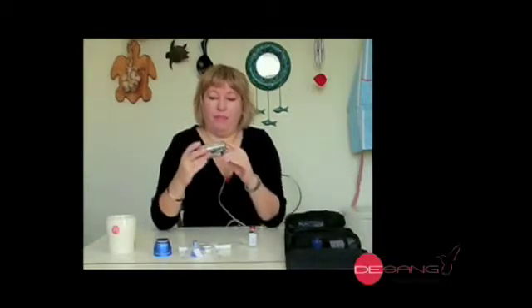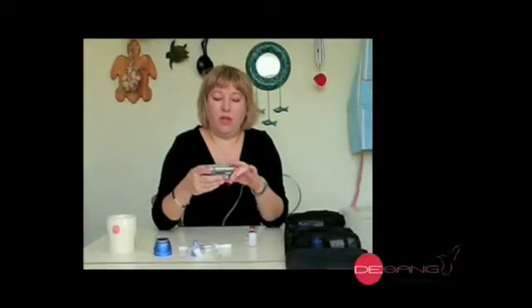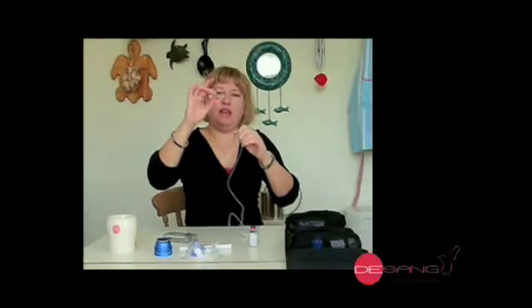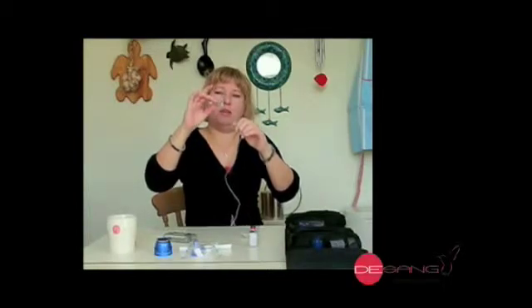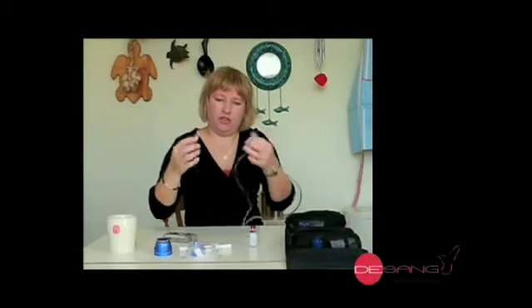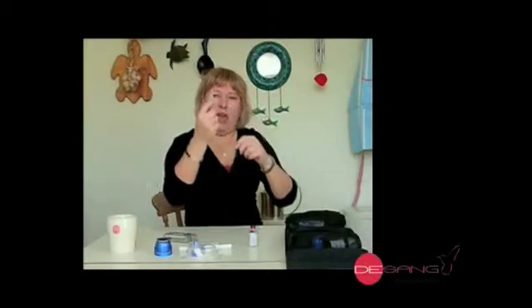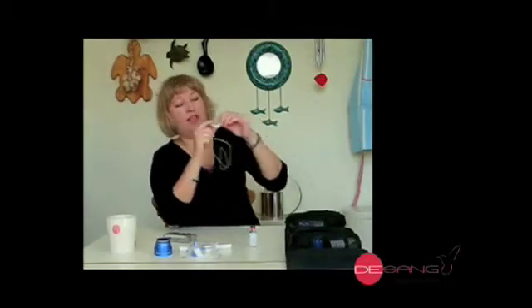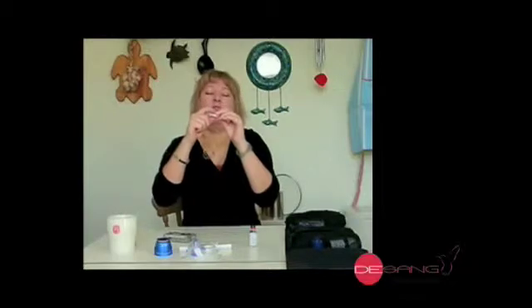This is the pump. I'm not going to go into huge detail as to each step, because if you have a pump you're going to have to do it yourself. I'm just busy rewinding back to the beginning, and this is what's come out. That's got a little tiny bit of insulin left in, but it might last me a couple of days. But as I'm changing all the gubbins over, just to show you, I'm going to keep all this in. That's the tubing, and then that's the bit that goes in the end. It's hard to see the size of the insert, but it's actually not very big at all, and it's quite stiff, but it's also flexible. That's the bit that goes in your body — that's called the cannula.